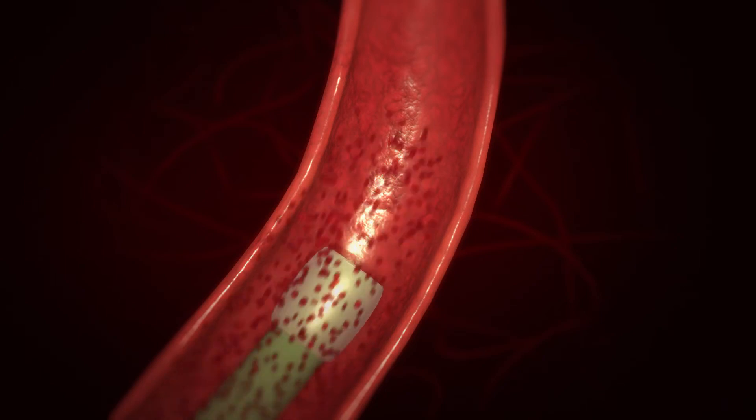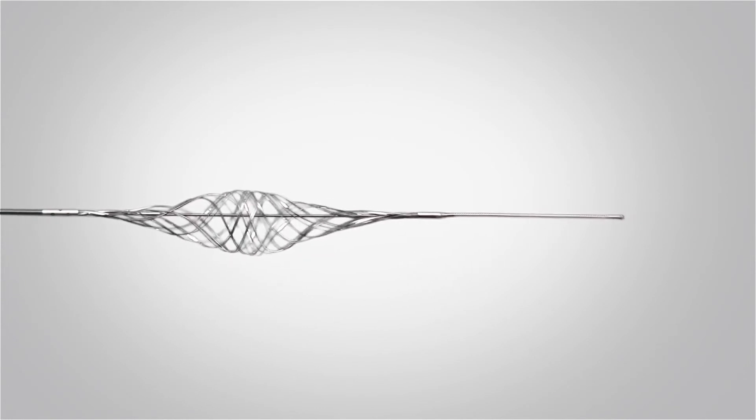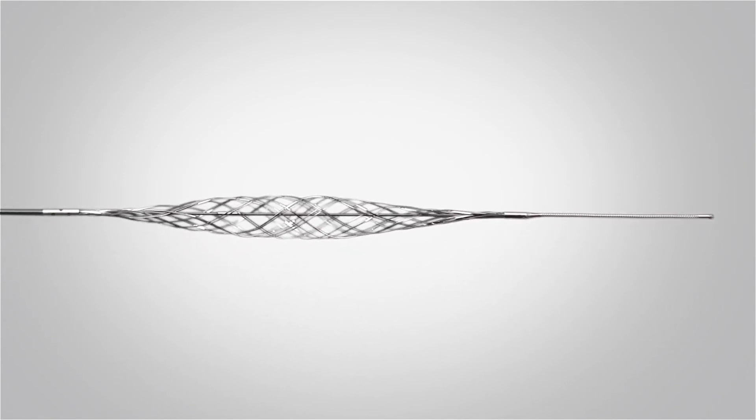The Stream dynamic neurothrombectomy net expands the physician's options for treatment of acute ischemic stroke with full device control.